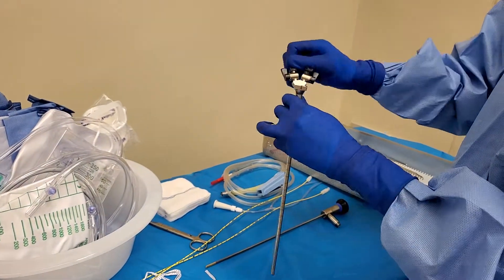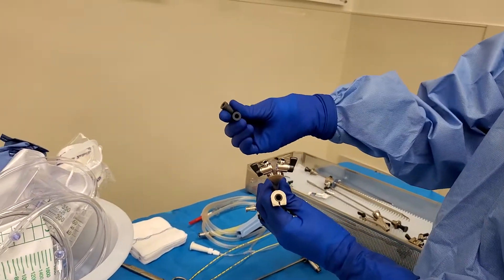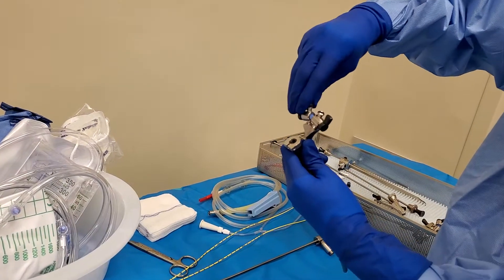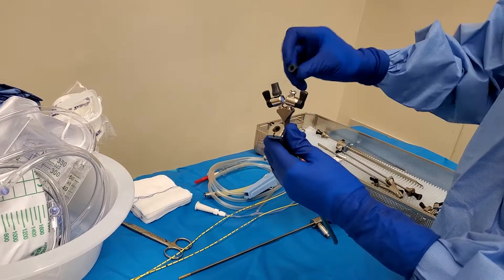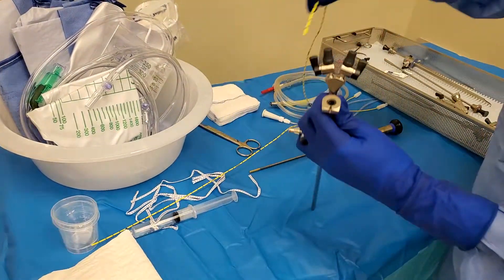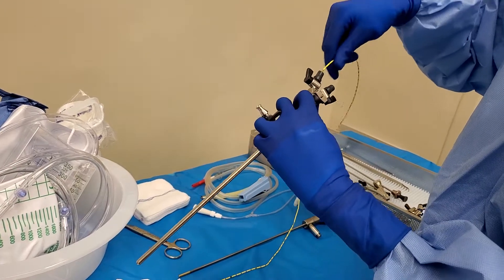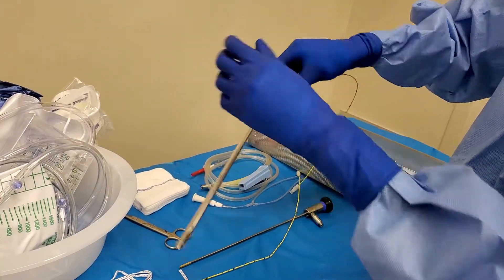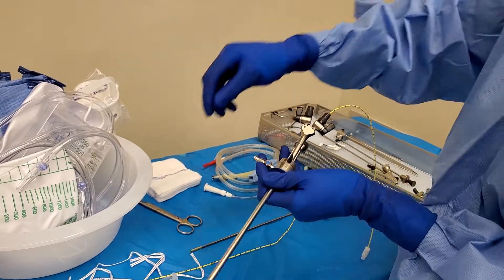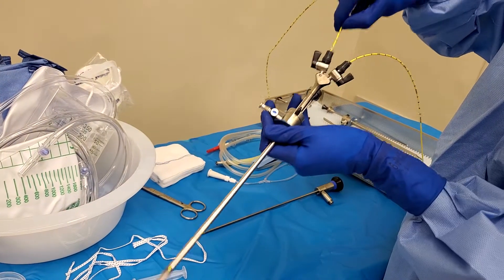So these are called nipples. They do not come installed in it, but they come in the tray, so you must put them in yourself. All you need to do is go in here and go in here. This actually goes in here — I like to put it all the way at the end. You want to use lube because it's going to be harder to go in without it.